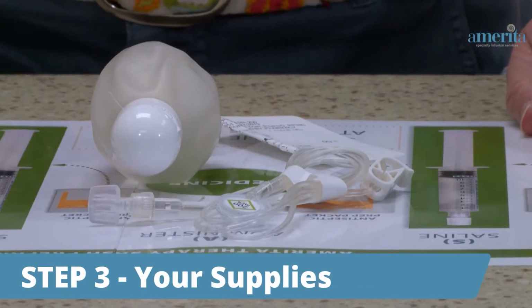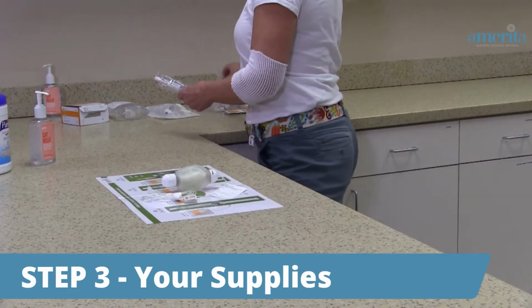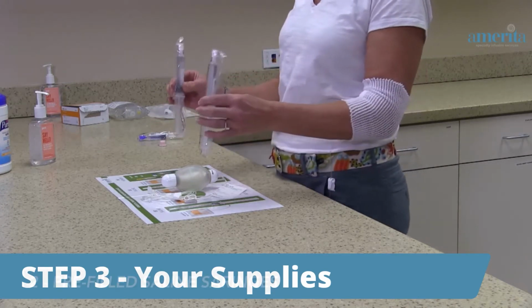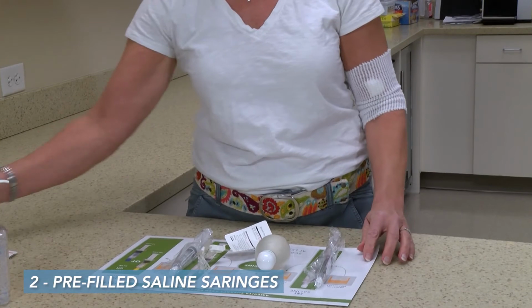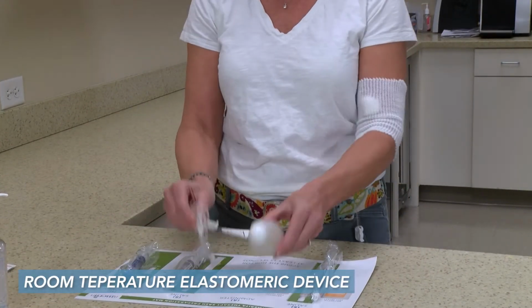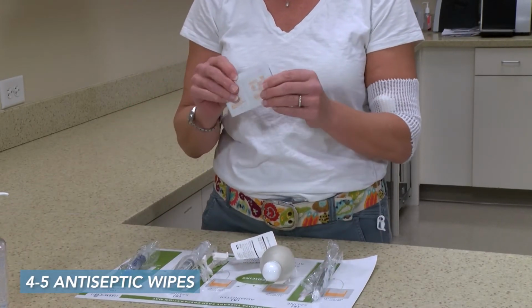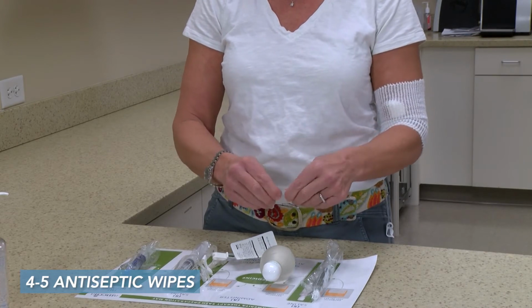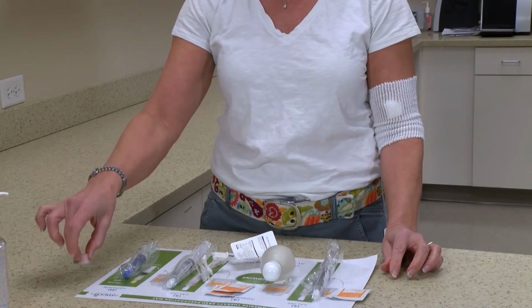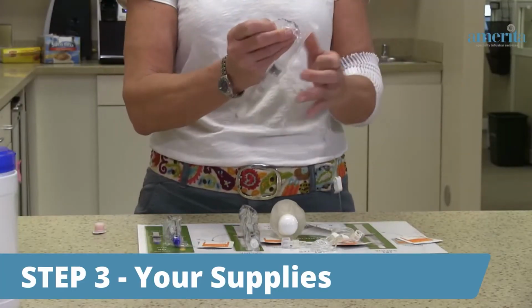Step 3. Your supplies. The SASH mat will help guide you during this procedure. Now, gather your supplies, which include 2 pre-filled saline syringes, a heparin syringe, if this has been ordered, your room temperature elastomeric device, as well as 4 or 5 antiseptic pads, and a new swab cap. Take the wrappers off the syringes and place them on the SASH mat, along with the medication.